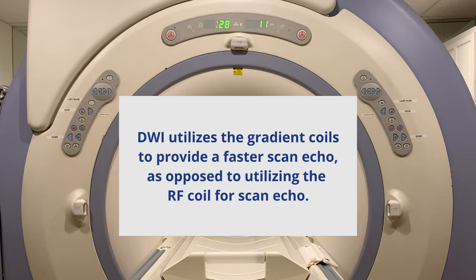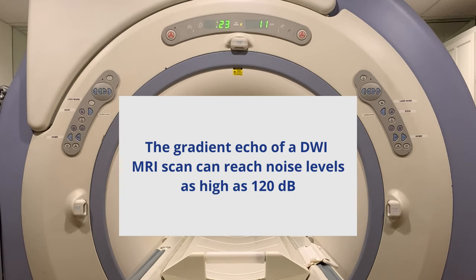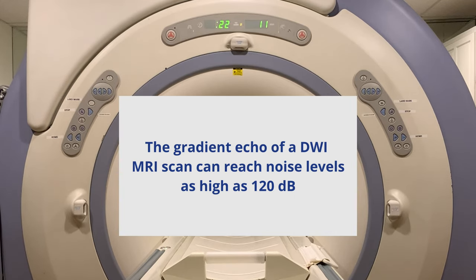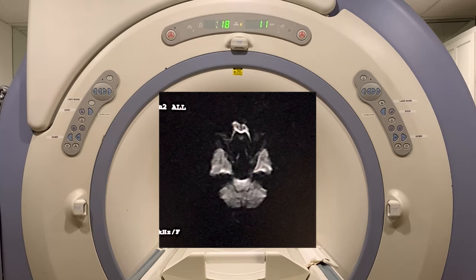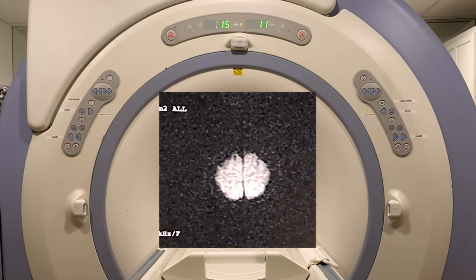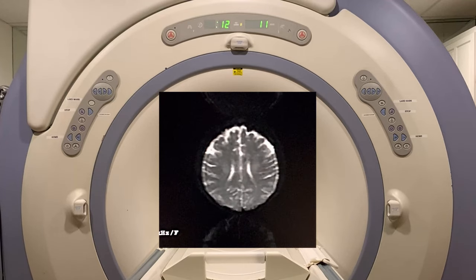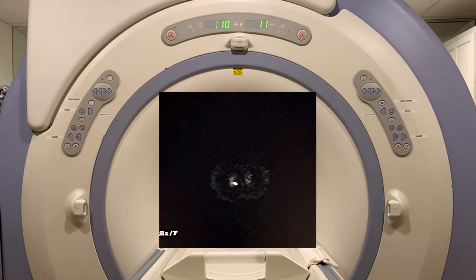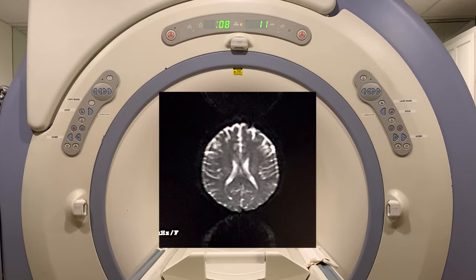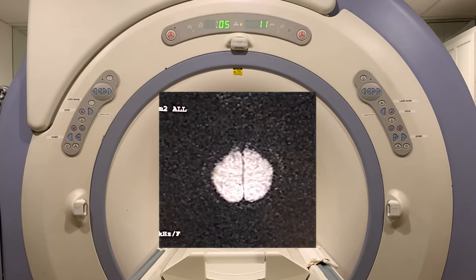Axial DWI EPI scan, commonly referred to as diffusion-weighted imaging, is a single-shot echo planar imaging protocol sequence. DWI MRI scans differentiate tissue with restricted diffusion from tissue with normal diffusion coefficients, based on the Brownian motion of the molecules in the tissue. Click the link on the top right to learn more about DWI MRI scans.